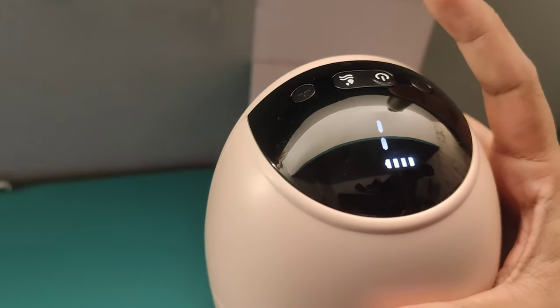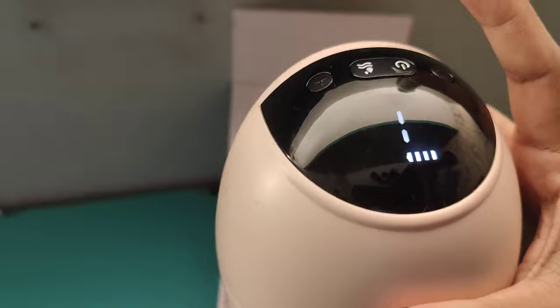You have to click on the power button to turn it on. There are pressure controls — minus means less pressure and plus means more — and there is also a flow option. Right now I am wearing the breast pump and it's doing its work. I don't have any pain; it's really good. I will tell you the results — how much time, duration, and quantity I have collected.